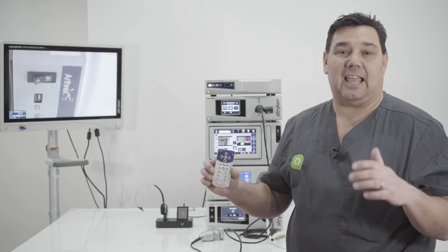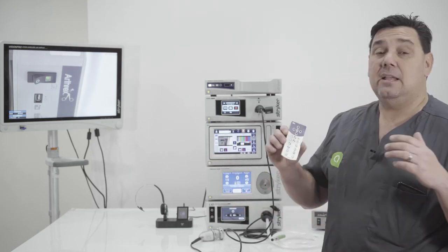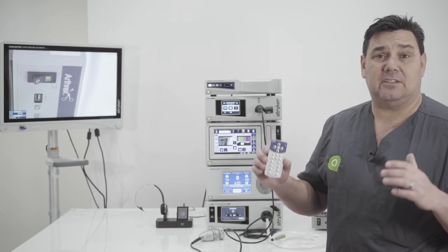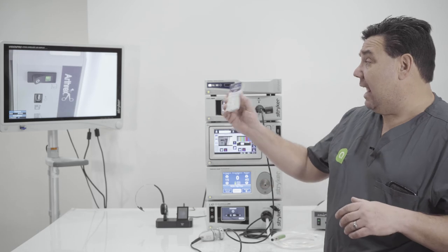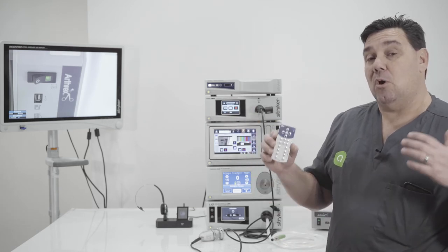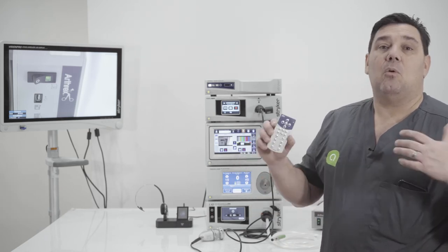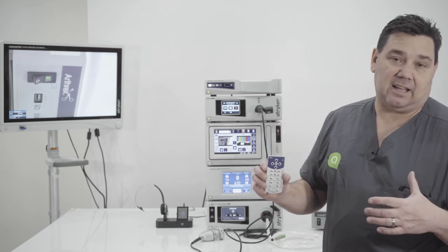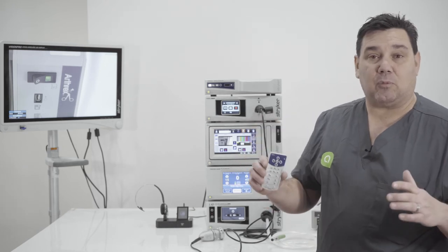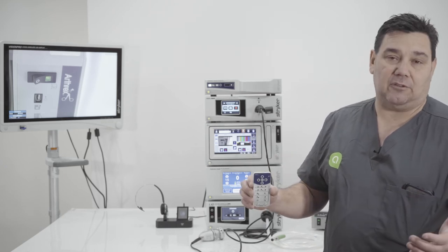The remote gives you options so you're not tied to standing next to the video cart. Device Control is very useful — you have the ability to run devices from the remote and you have your on-screen display as well. That leads us to the next part of this video: voice activation, which is another software upgrade.